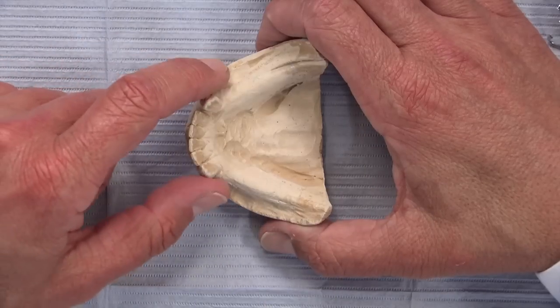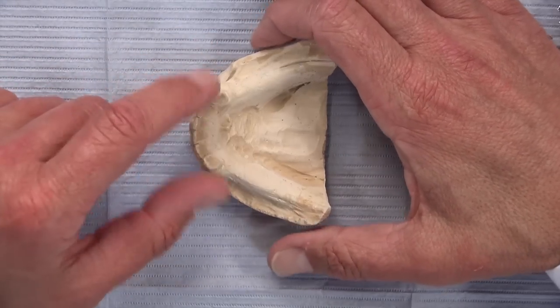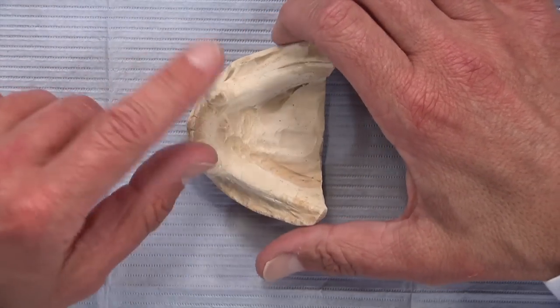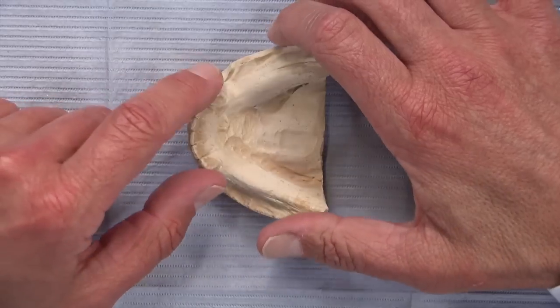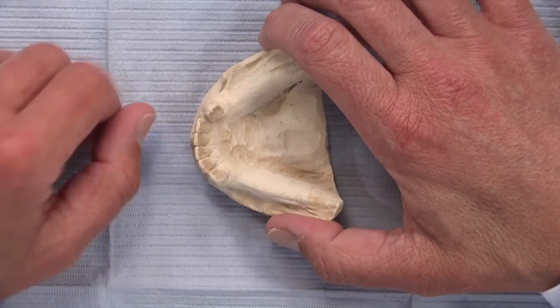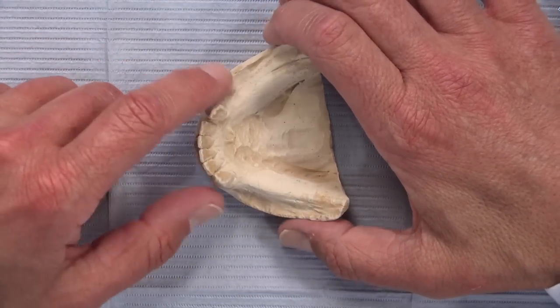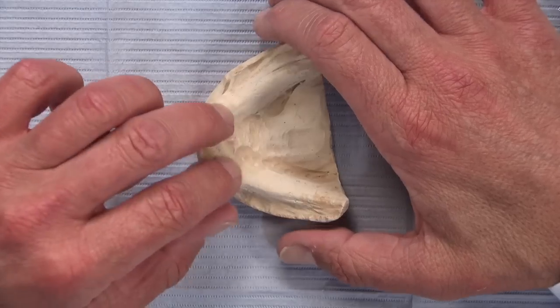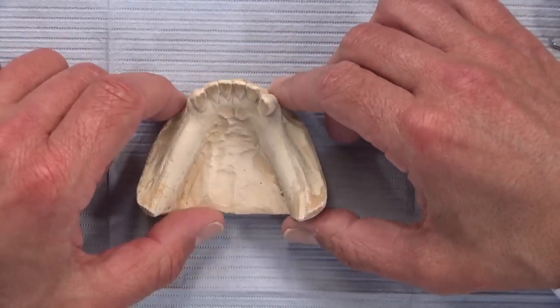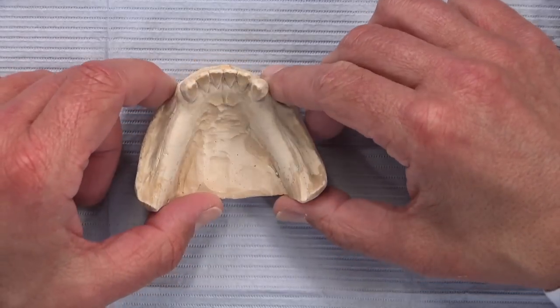I was taking my afternoon constitutional through the partial denture department and ran into the manager Jerry Lord. I said, 'Jerry, what's the biggest mistake or the biggest issue that you've seen this week causing your people to have to call doctors?' And he said it's what they call the slippery slope, and this is what the slippery slope looks like right here.